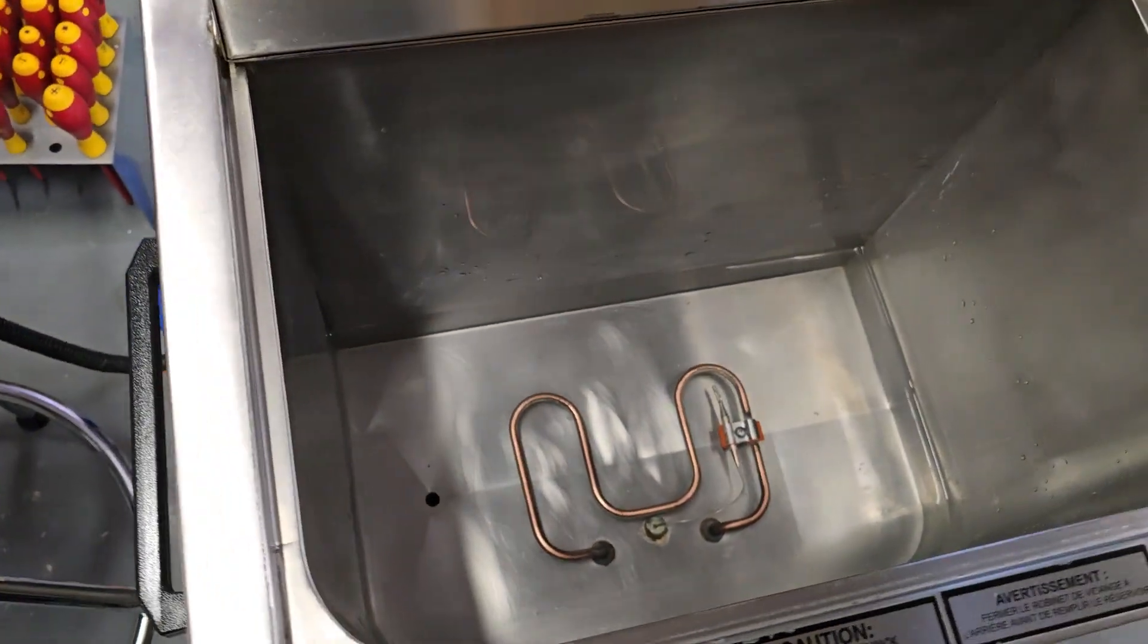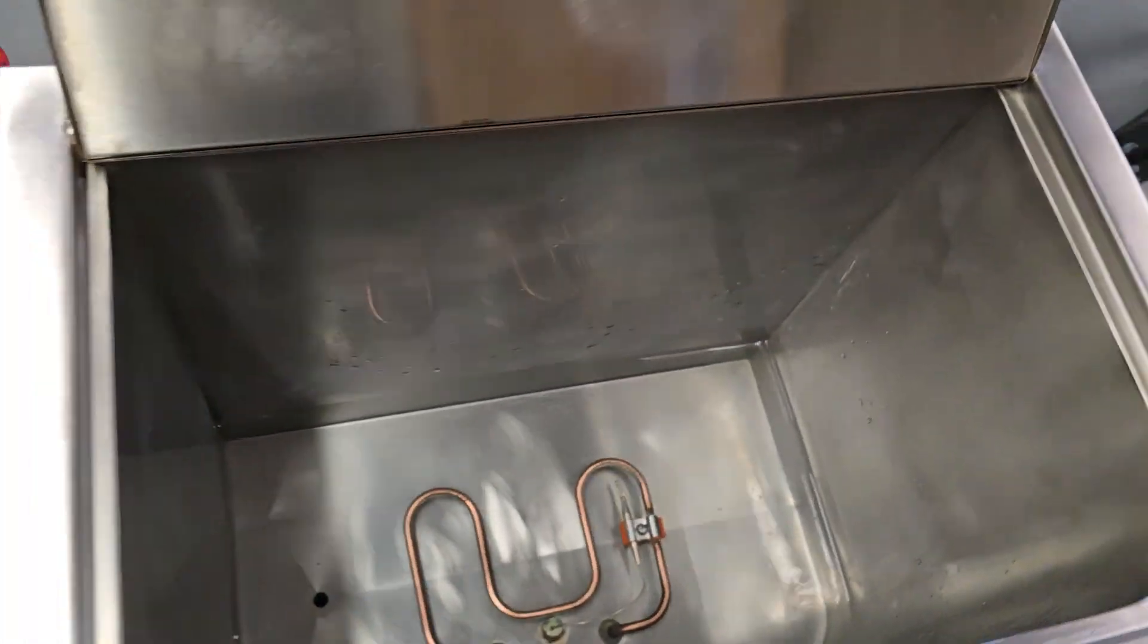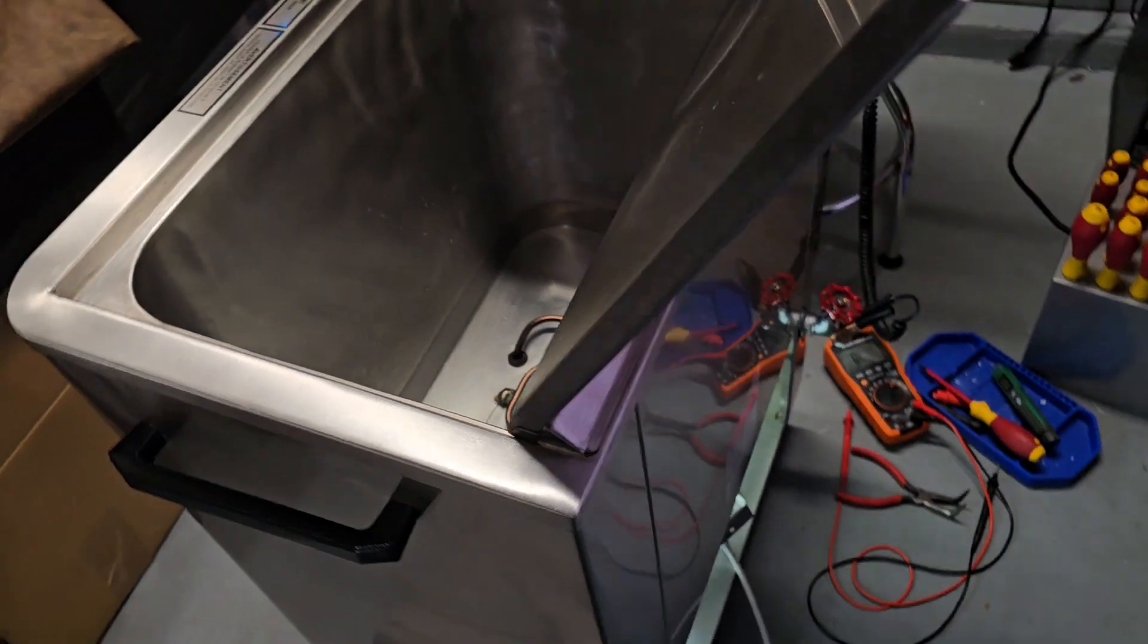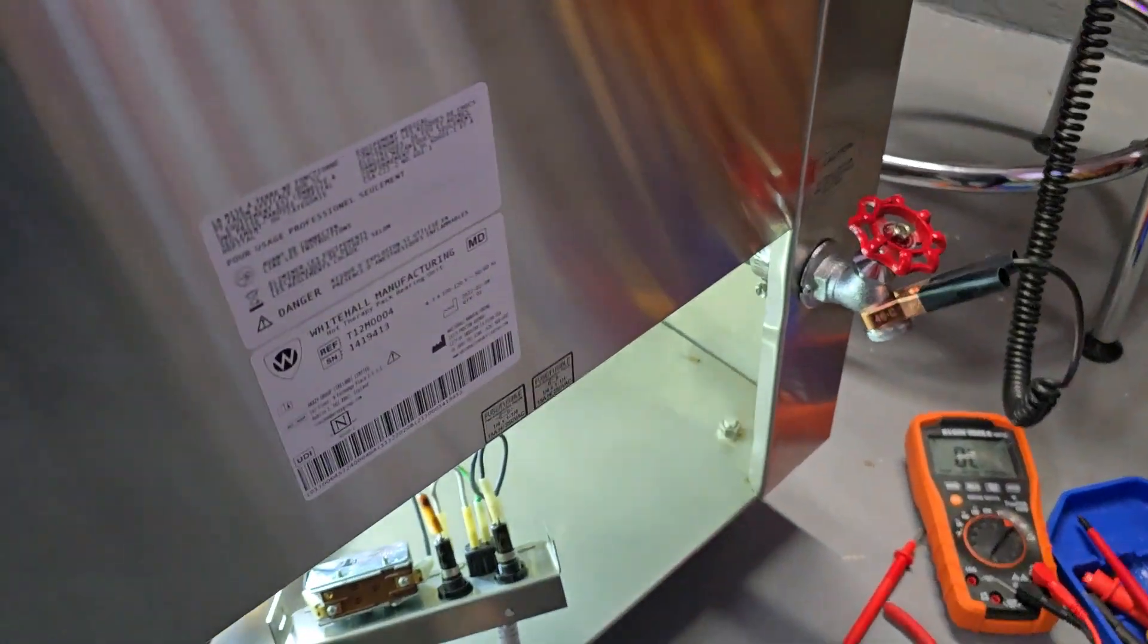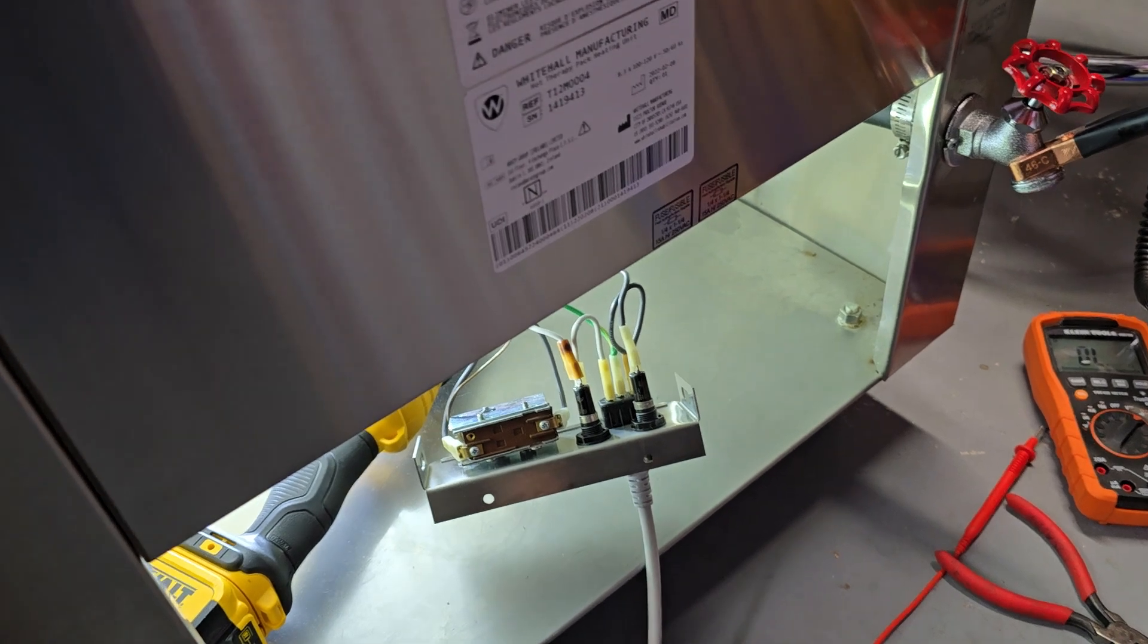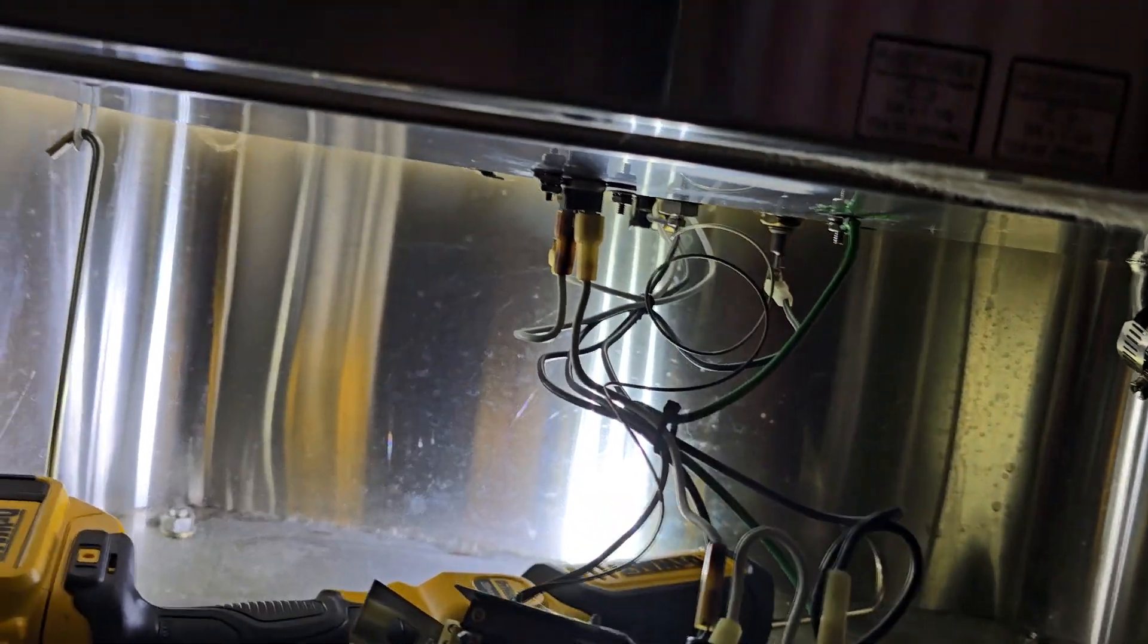So here is the hydrocollator and I've kind of already got it figured out and I want to show you guys because I'm pretty sure if I see this problem you guys are probably going to see it too. So it is currently live and you remove the bottom pan here, it's very simple in principle.